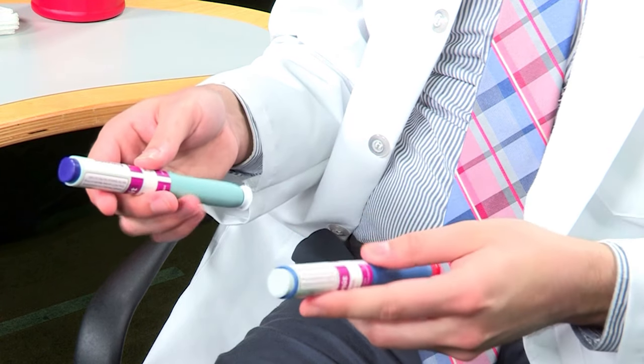The first thing to do is to read the prescription label. Make sure that the dose on the label matches the dose on the package. You should also inspect the package for any damage.